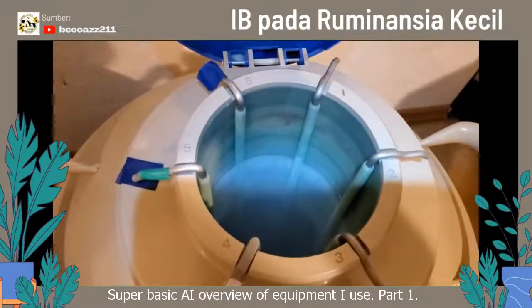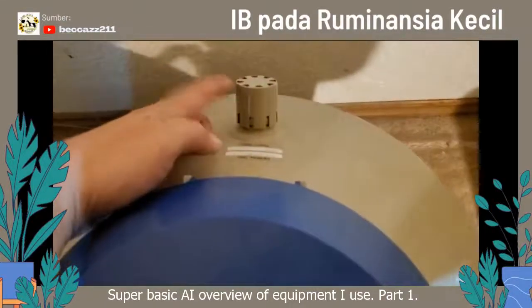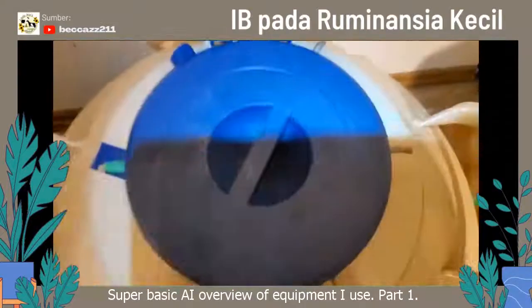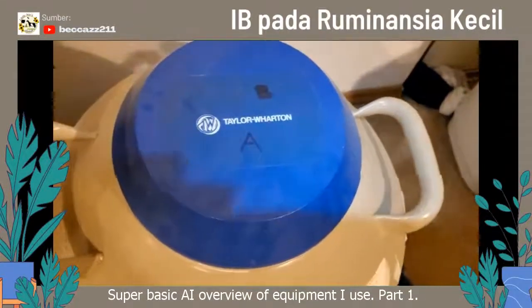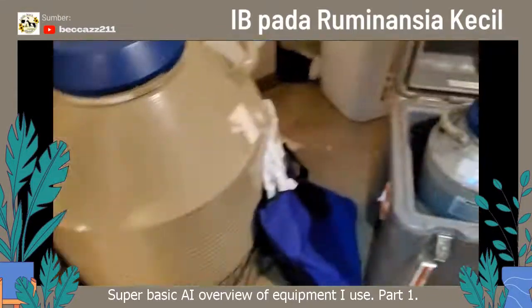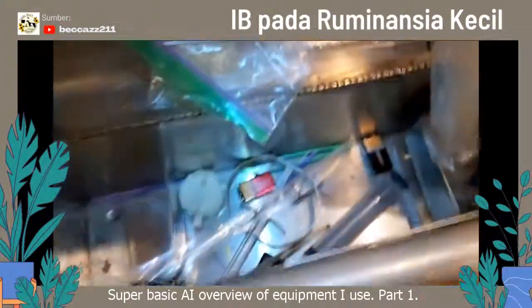These nitrogen tanks are basically a tank within a tank. The outer wall has air between it and the inner wall, and there is a vacuum port. That is how the nitrogen — which evaporates into air, because the atmosphere is made of nitrogen — that's why they insulate it like that. Hold times on your tanks are going to vary by the manufacturer. So that's just a basic look inside the top. Basic equipment that we need for AI is a tank. I also have a little shipper here — that's for transporting. You can actually fly these on planes because it's considered a dry shipper.